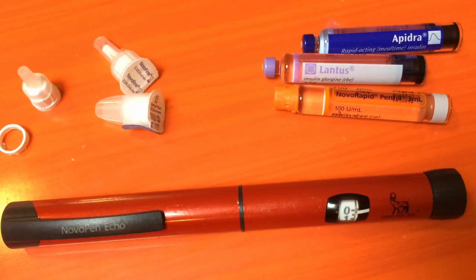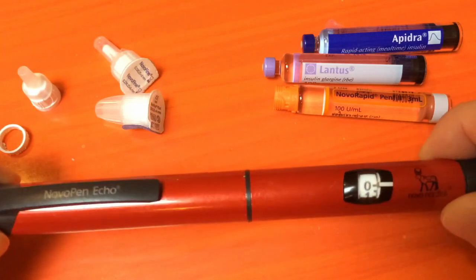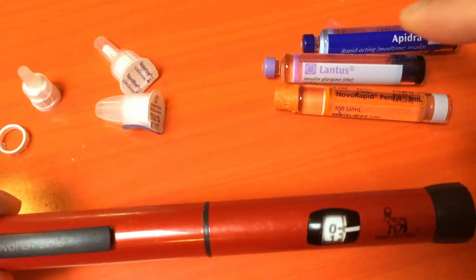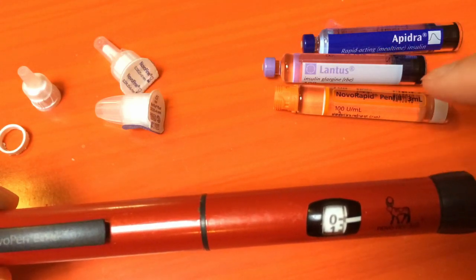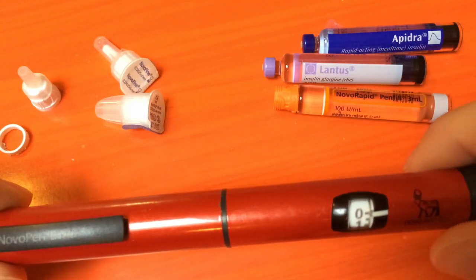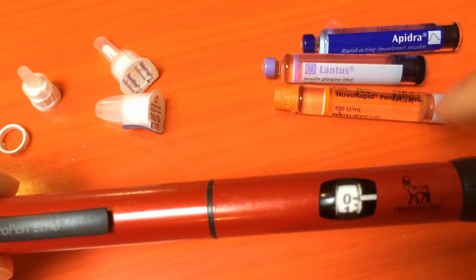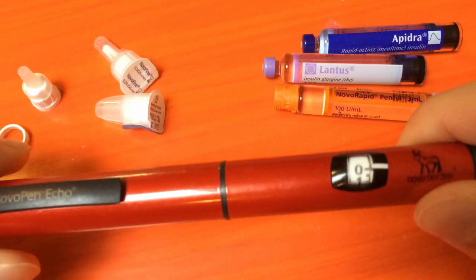Hello, everyone. Today I'm going to be talking about how to adapt the NovoPen Echo to fit Lantus or Apidra vials. Normally it takes NovoRapid and doesn't work with Sanofi insulins.